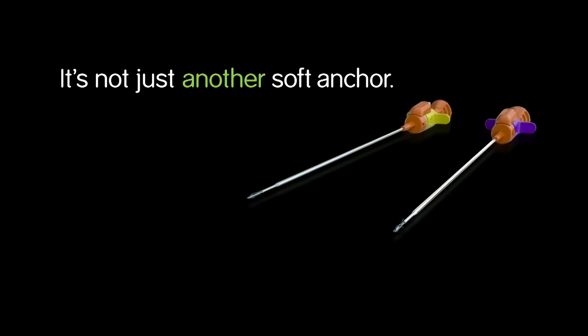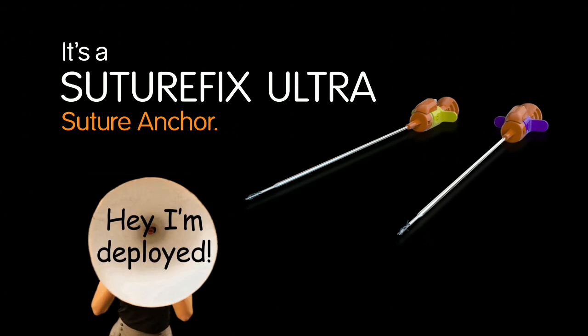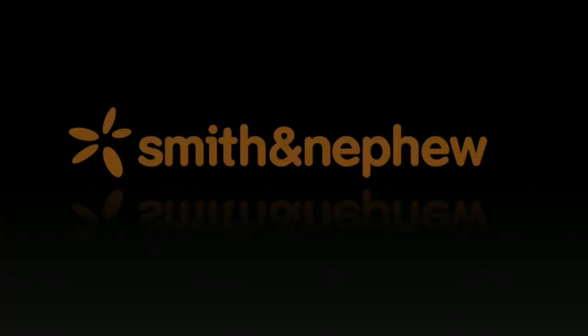Yep, it's a whole new day for soft anchor fixation. And it's not just another soft anchor. It's a SutureFix Ultra Suture Anchor. The one that tells you when you're good to go. From Smith and Nephew.